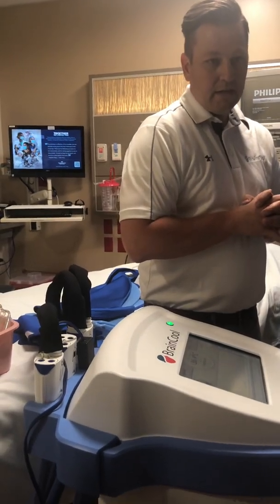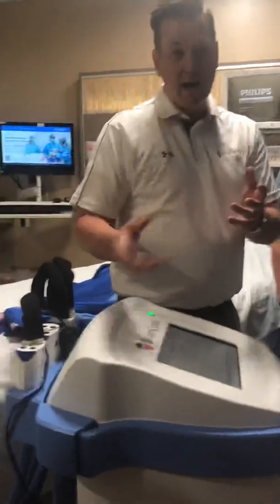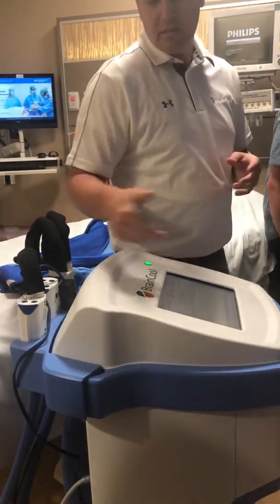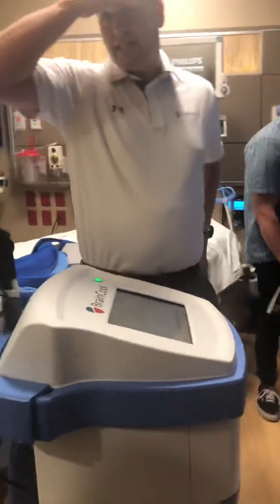It's easier to have you just pause it and leave it on than to turn it off and turn it back on. Even though it will continue with the last patient, it's just easier. It saves you 90 seconds, because it takes about 90 seconds to do that. Okay. All right, that's the big takeaway.